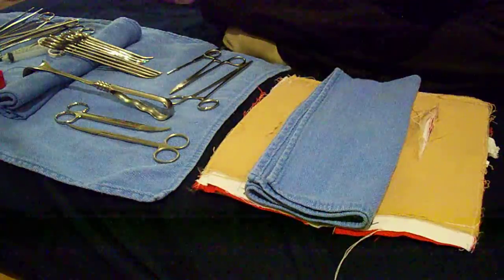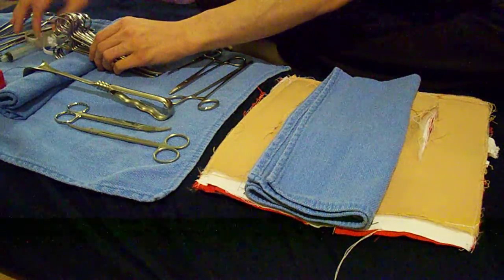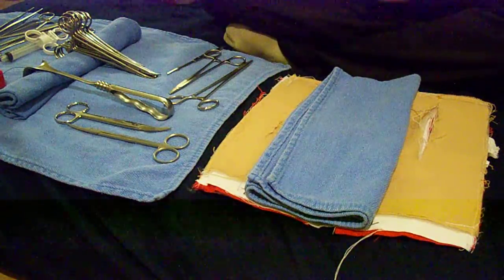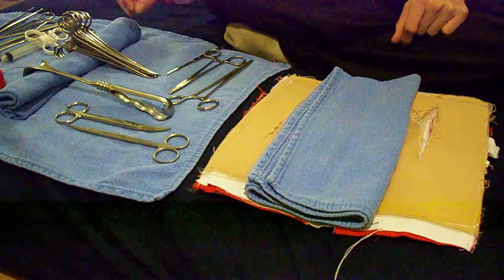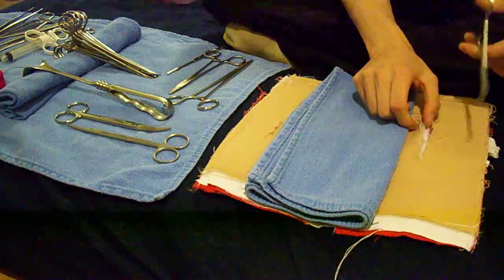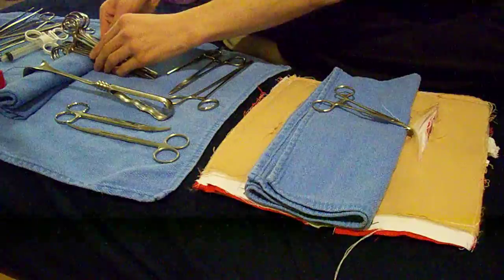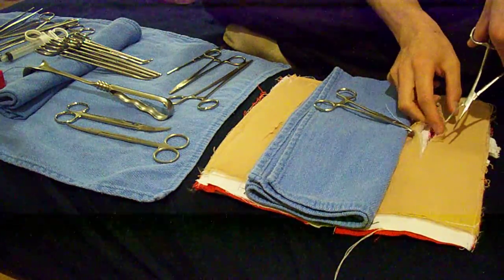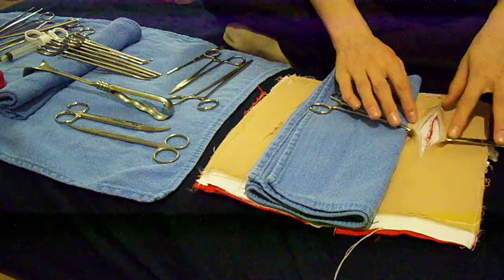After that we have our main instrument stand — this is supposed to represent the Mayo stand or something similar, minus the exact order of things. We grab a Kelly clamp to hold the subcutaneous layer and the skin together, grab another Kelly and do the same. This is basically for an exploratory laparotomy case.